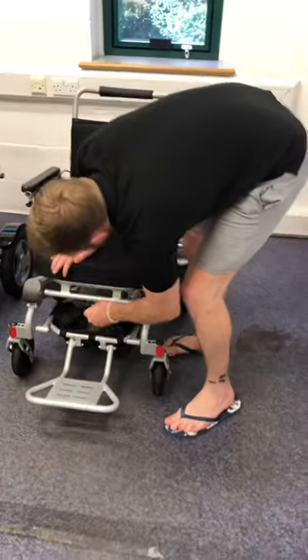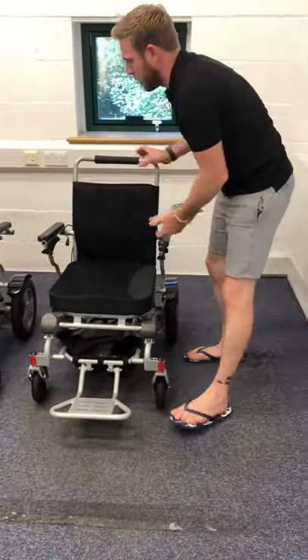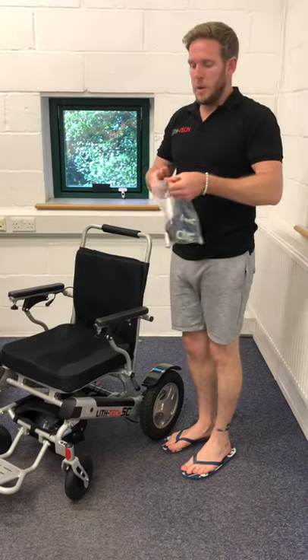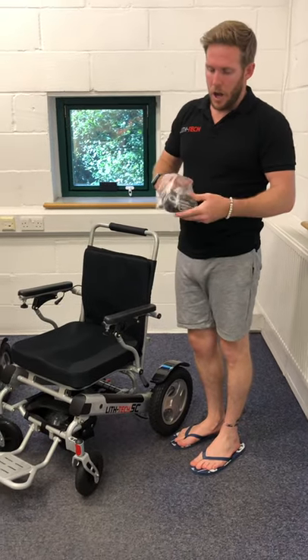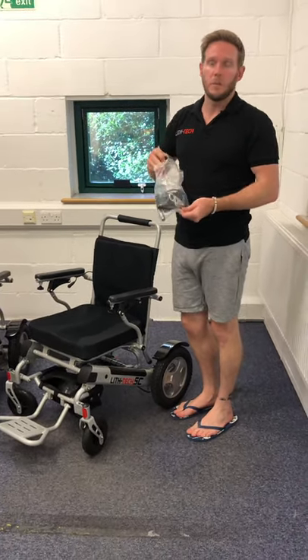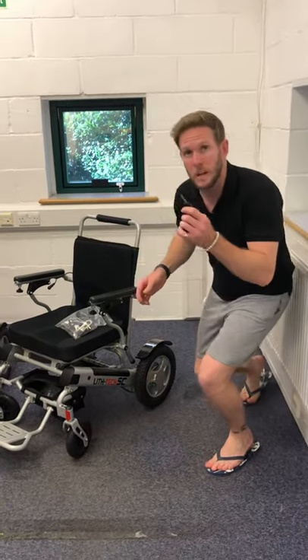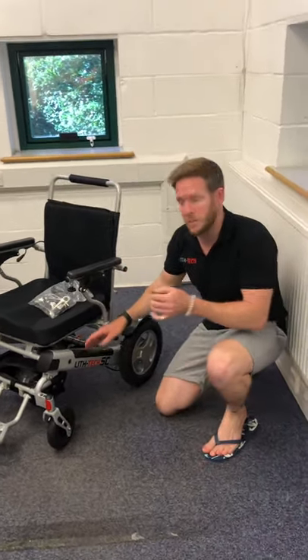I'm going to use a little key and show you how these operate. Nowadays with crimes on the rise, people realise that mobility equipment is pretty expensive, especially the batteries. To stop these batteries from being stolen, they're completely lockable — it's got an anti-theft battery locking system.